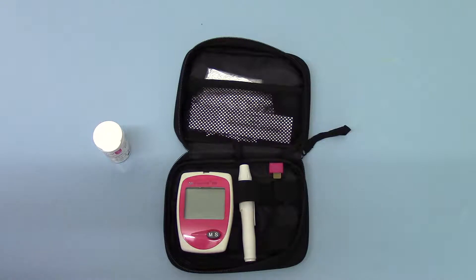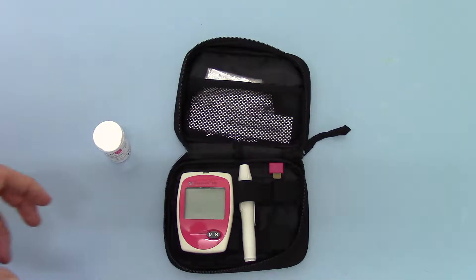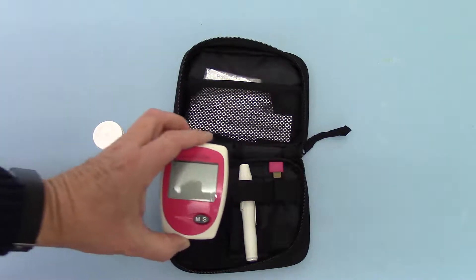Because we are seeing a lot of people are not following the procedure fully or setting up the meter correctly, and either getting it on the wrong scale or using a poor lance technique to get their samples. So first of all, in this part one of the demonstration, we're just going to show you the setup of the meter.